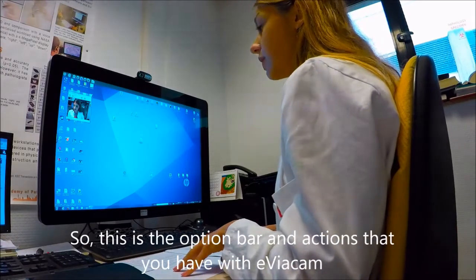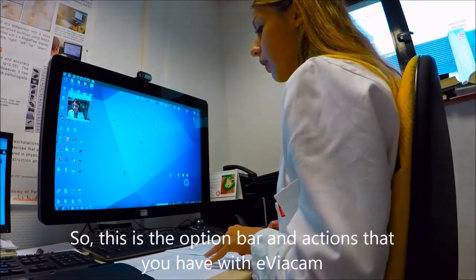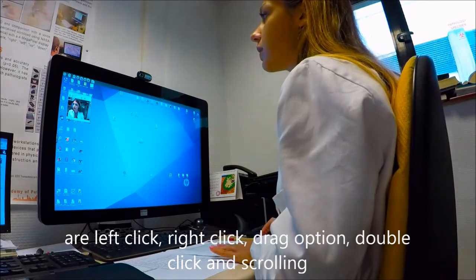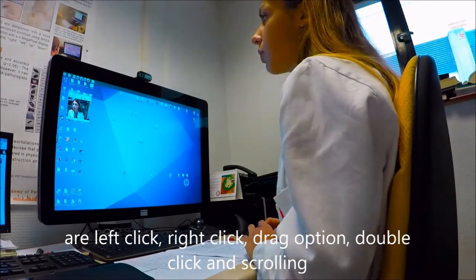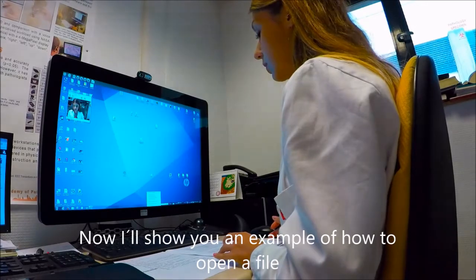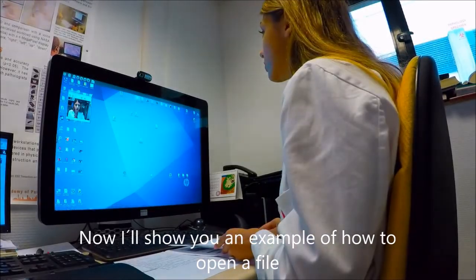So this is the option bar, and the actions that you have with eViacam are left click, right click, drag option, double click, and scrolling. Now I will show you an example of how to open a file and how to use it.